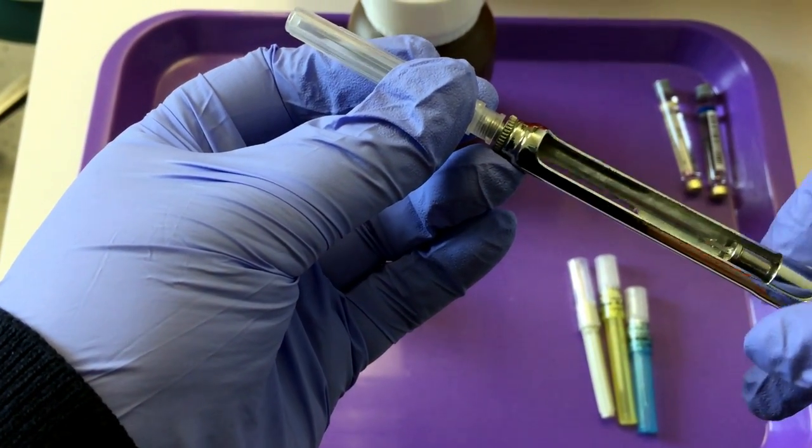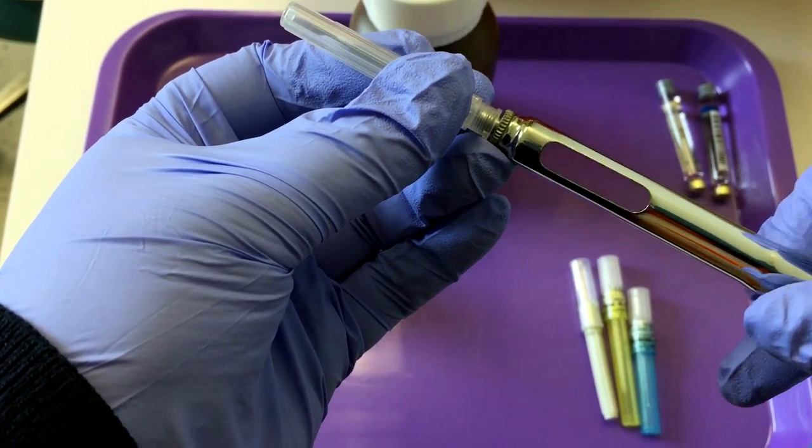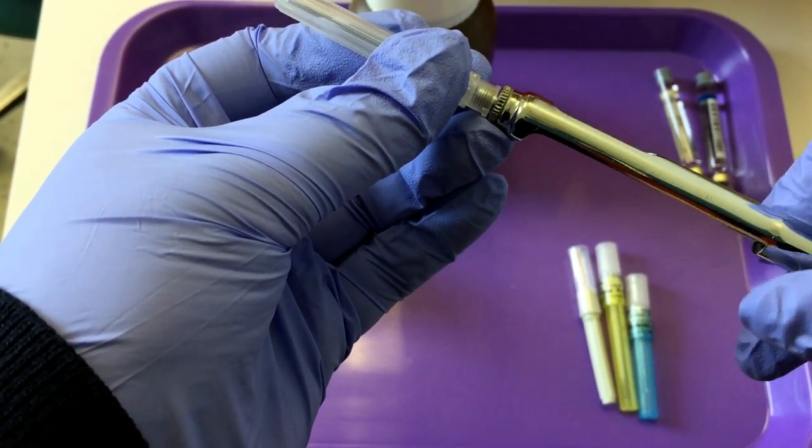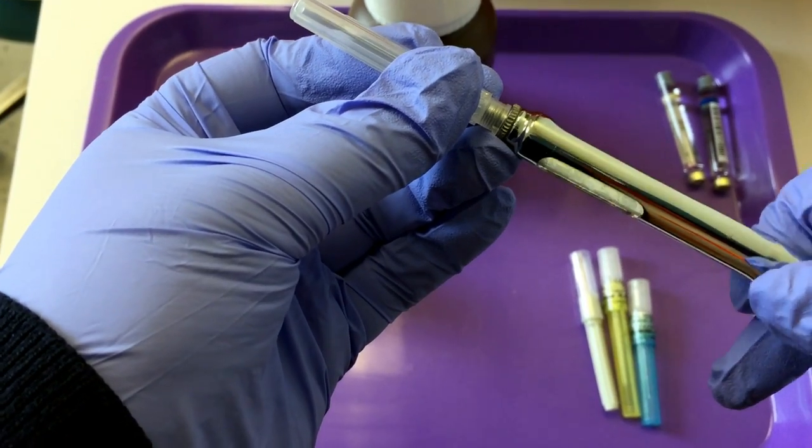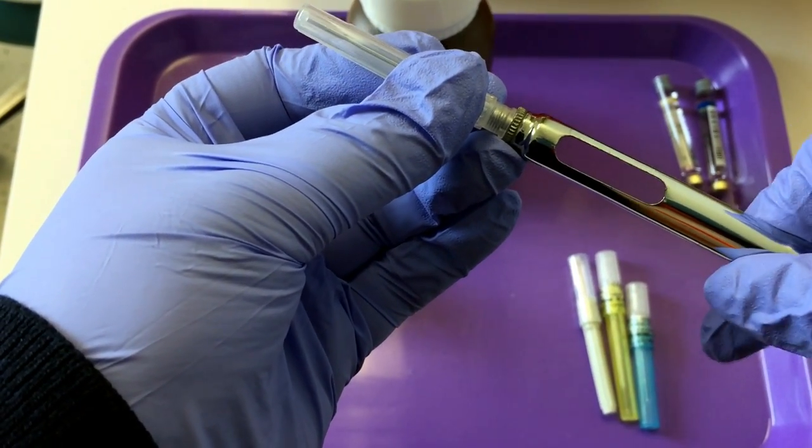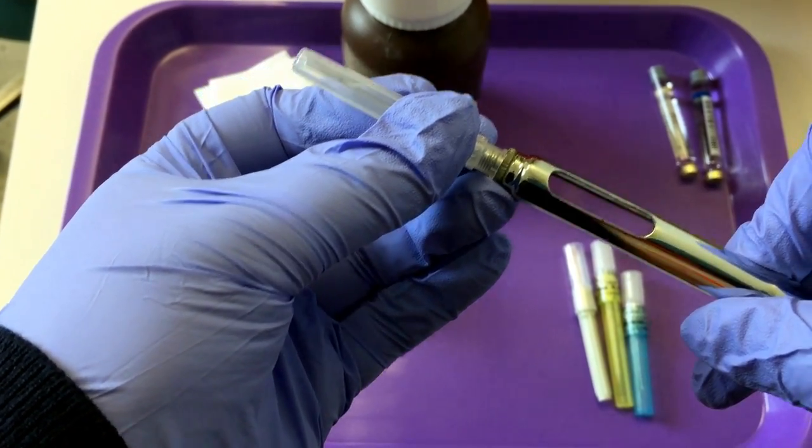If you turn the needle, there's a chance that the cap could come off, and that's where needle sticks occur. So turn the metal syringe until it is securely in place.